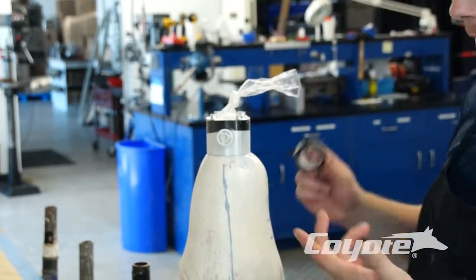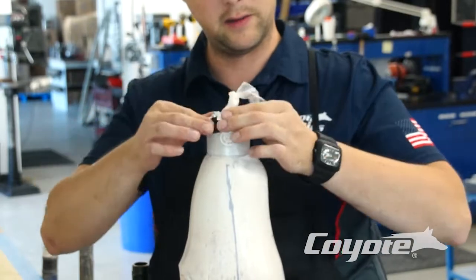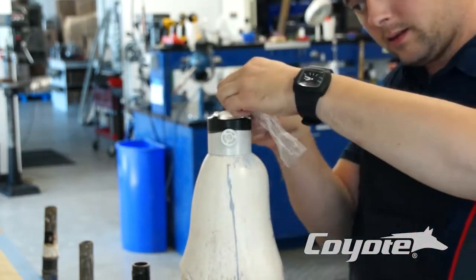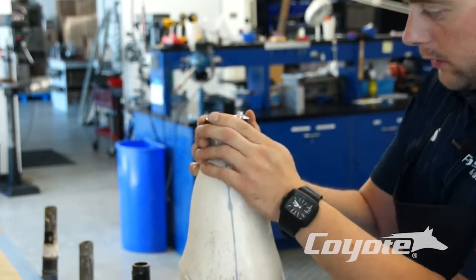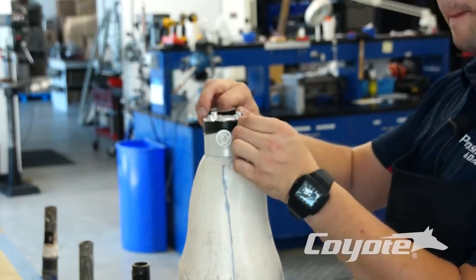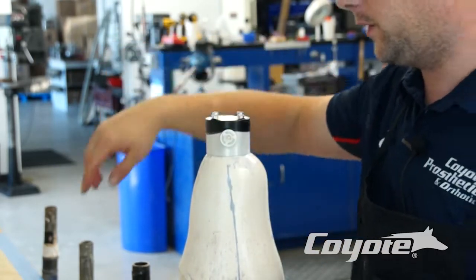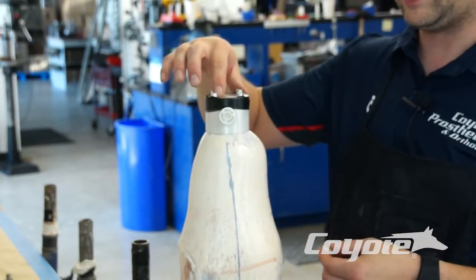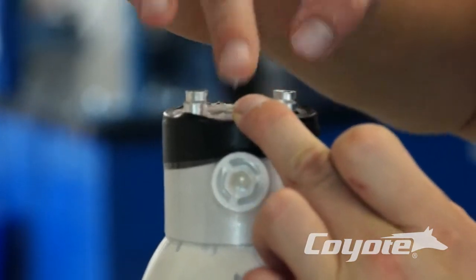You can tape it or tie it off to keep your vacuum on there. Just go right over to the edge of this fabrication dummy — one layer nice and tight around that top. Then take your razor blade or scissors and cut your bag all the way around to the edge of that fabrication dummy. Now we've got our tape on there. Give this a little pull down around that edge, and put another piece of tape around there to seal off that bag. You can see our tape is over that leading edge, sealing off our PVA bag on top. I've already put some compound four — it really helps remove that center puck piece for removal. Grab some clay or putty and go around this exposed edge and seal that off so we don't get any resin leaking inside of our fabrication dummy.